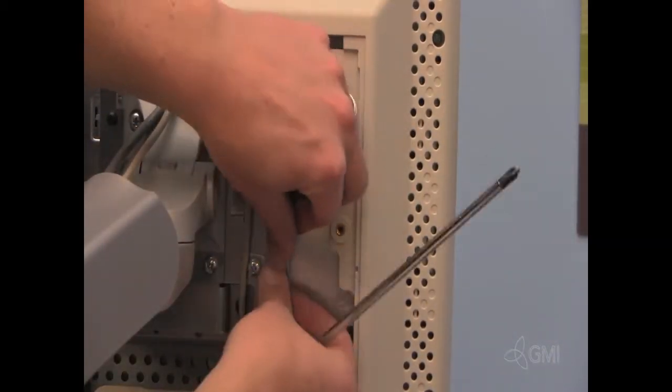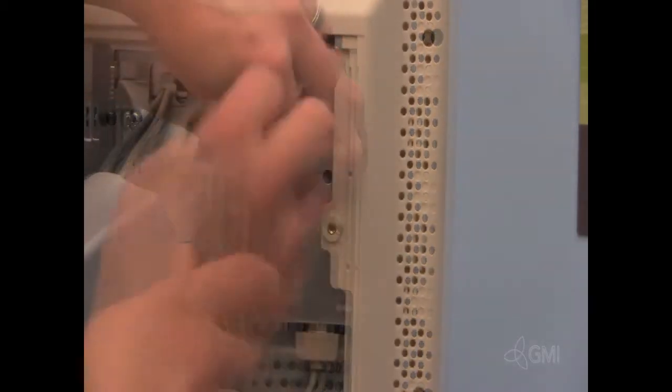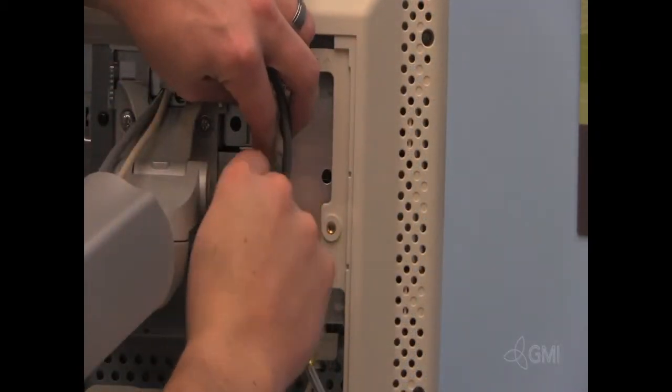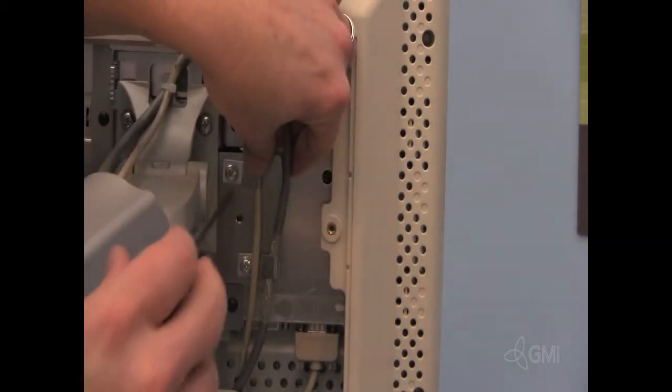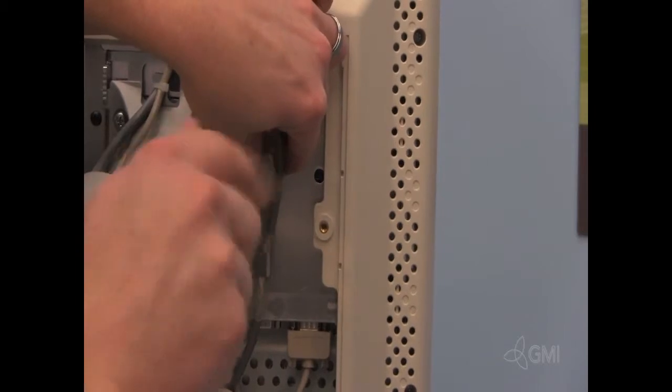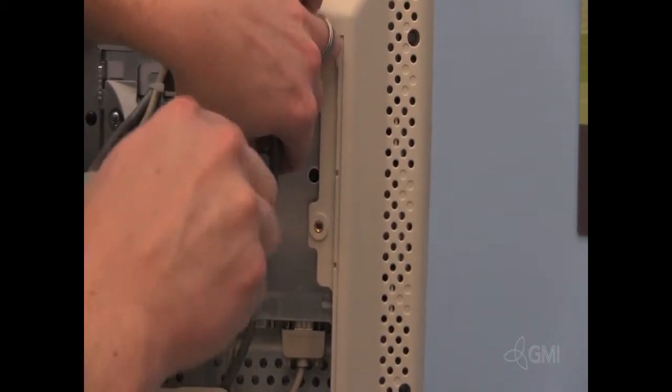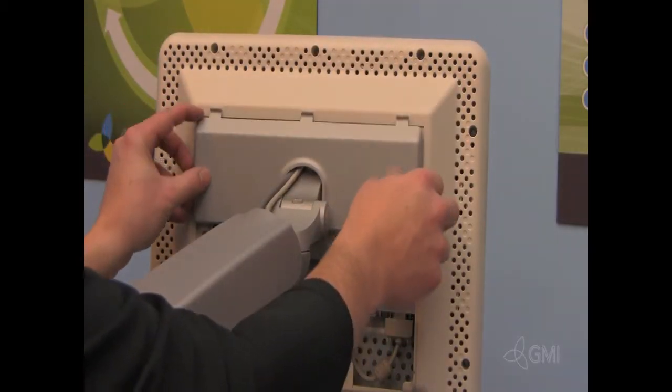Secure both cable clamps. Reinstall the upper monitor panel.